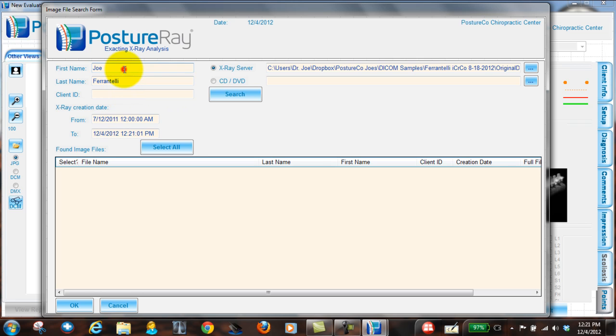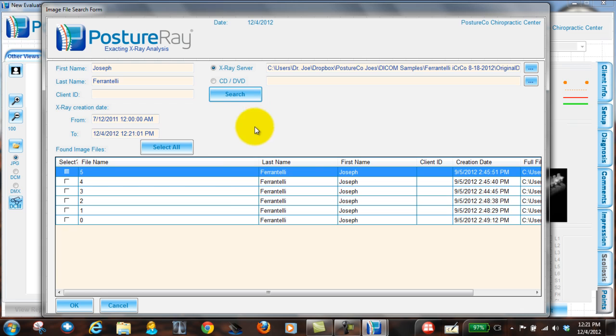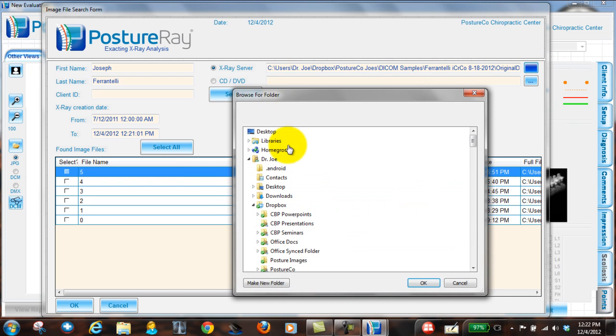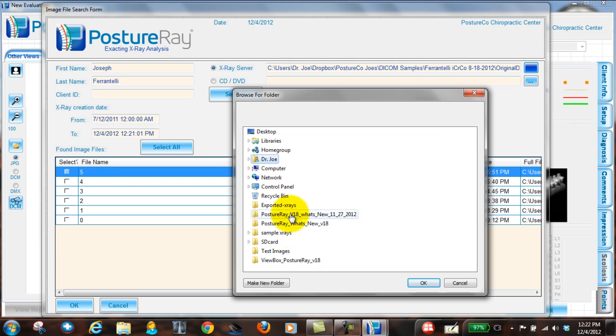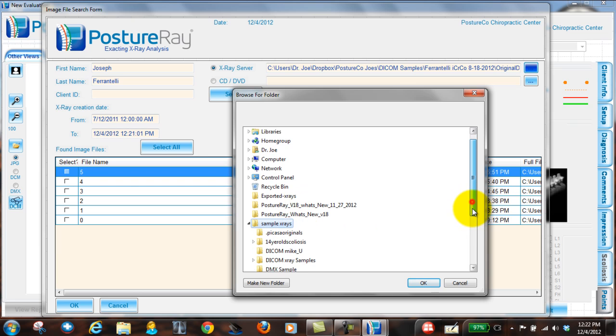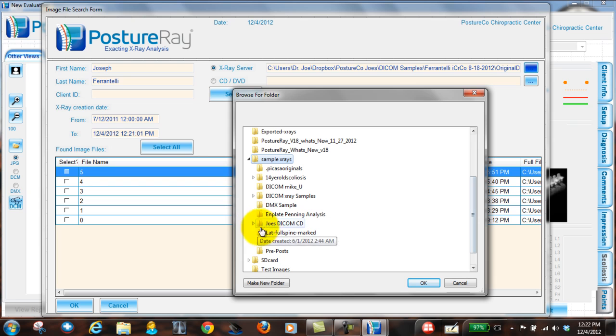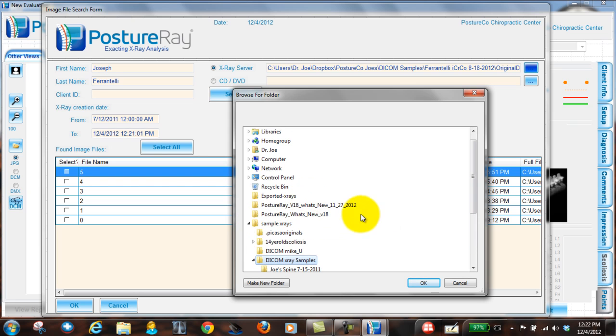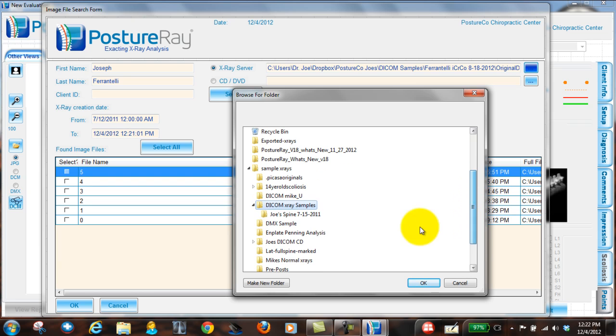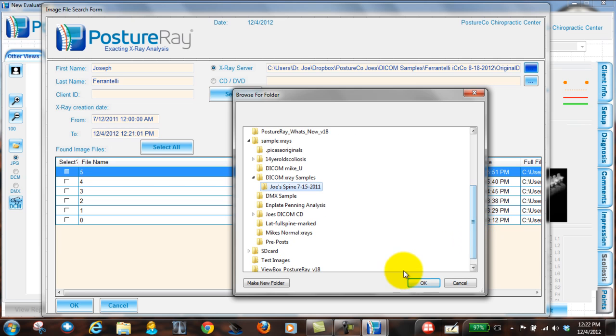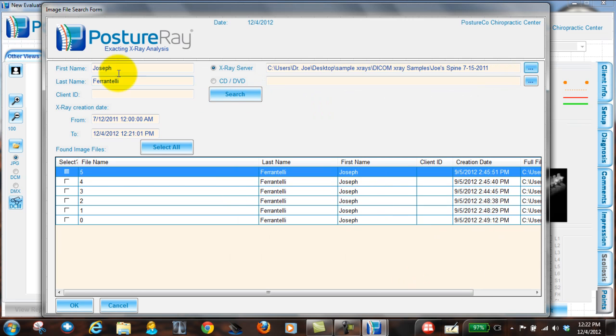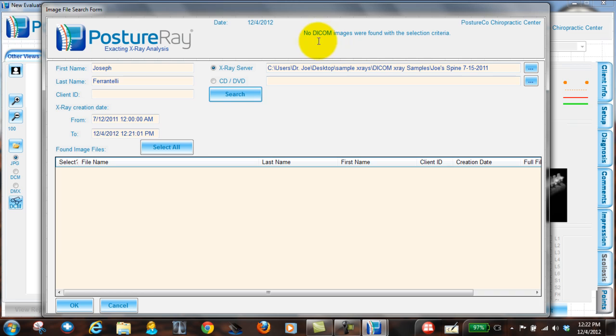But I want to show you something here while we're in this feature. It's really important. If this person's name was Joseph, and I hit search, it's a lot of times it won't find everything if by chance I... Let me go ahead and choose a different path just so I can show you. So this is kind of mimicking my X-ray server. Now if I have Joseph, I believe I put Joe in on the X-ray machine. So if I hit search, notice it says no images can be found. So that's what I wanted to exemplify there. So if this was your X-ray server and they put in the wrong information, you're not going to be able to find those images.